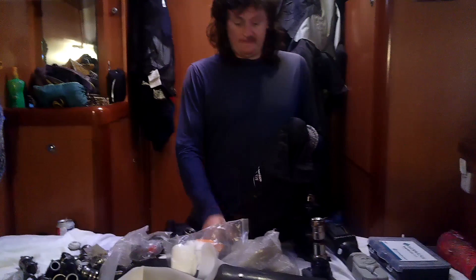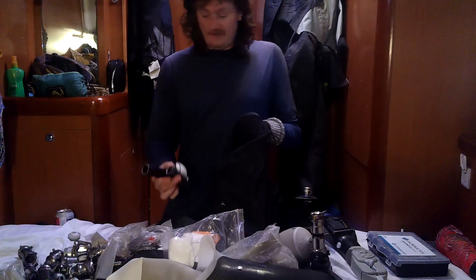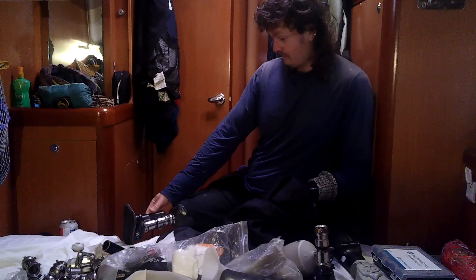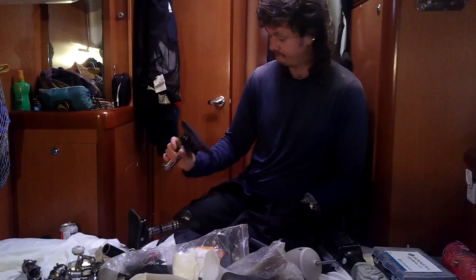It fits the 10 liners I've got - it fits everything. When I need something I usually just come to the bed and sort it out. I can change my height - I could take this black bar out and put another one in if I want to be a little bit taller. You can see how my feet are wearing here - I could just change the foot over and put a new one on because they're the same feet.